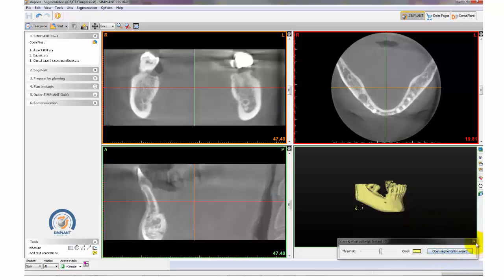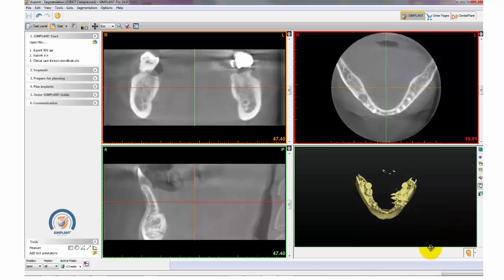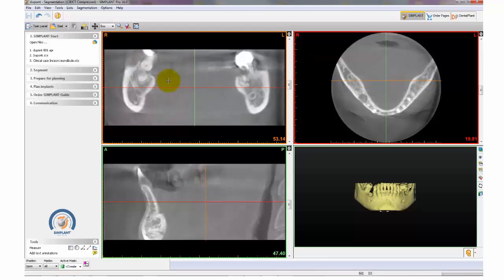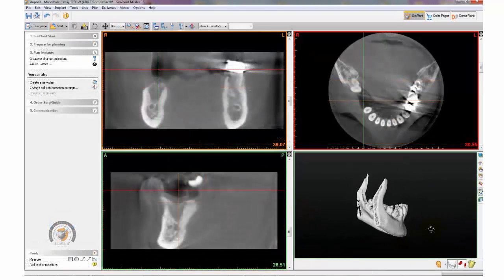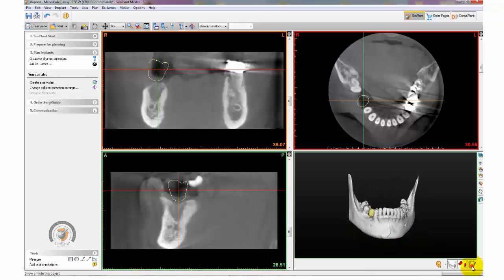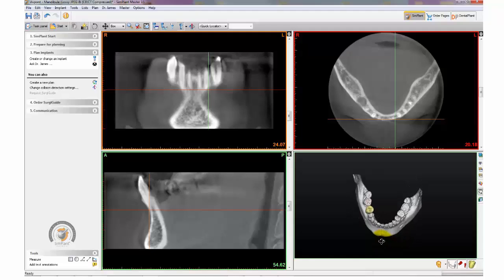Simplant has four main views and currently I'm in the 3D view, manipulating the 3D image. If you prefer to clean up your CT data, this can be done through segmentation, which is a process of segmenting out scatter from your CT data and separating important anatomical structures within the plan.